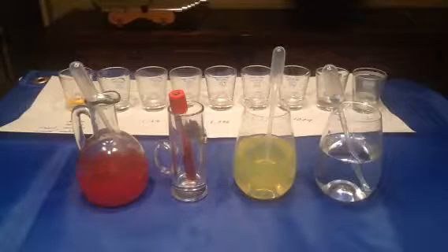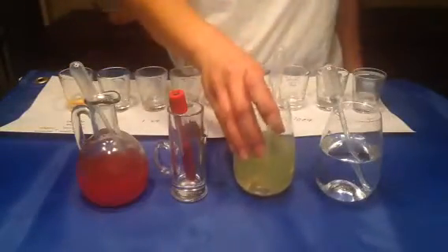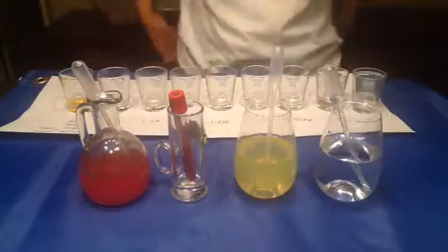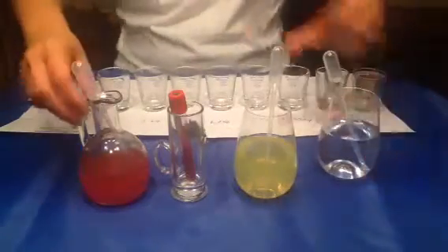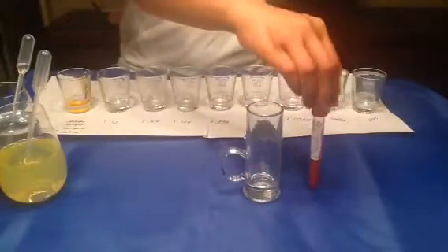So today we're going to test patient serum with O cells in a serial dilution. I'm going to start by making my diluted sample. First of all, I'm going to show you this is a patient sample.